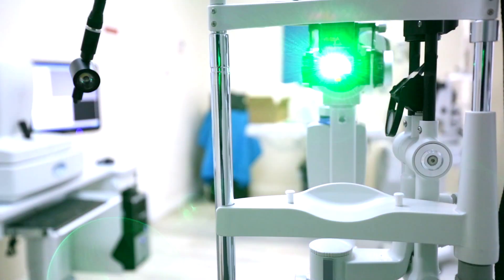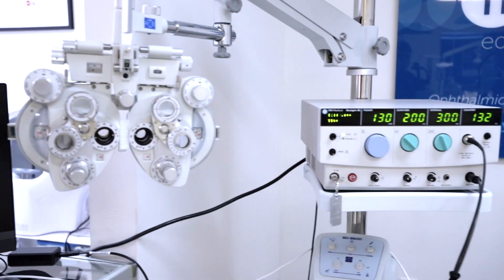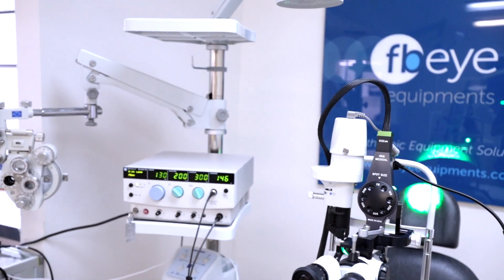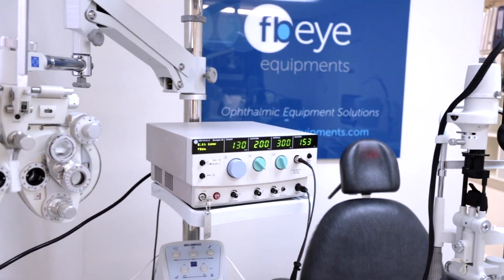Including the TrueCW laser's pulses for maximal control and precision, it's been designed for durability with a thermal management system to increase laser conversion efficiency and reliability. It enhances user interface with conveniently located and easily understood controls.